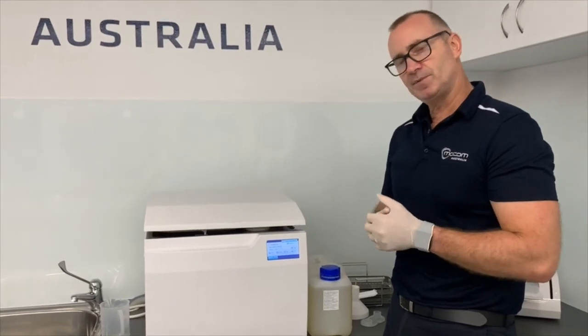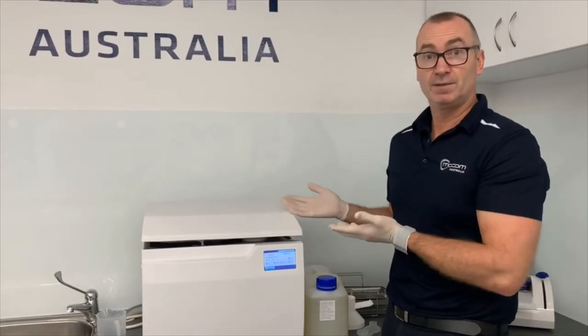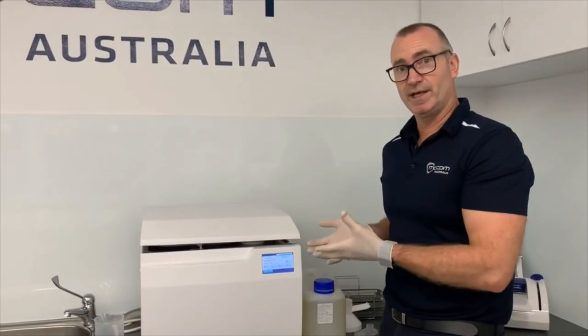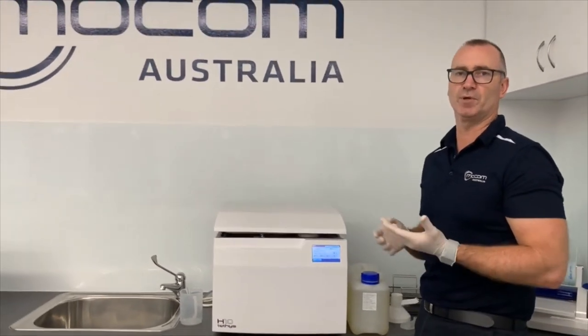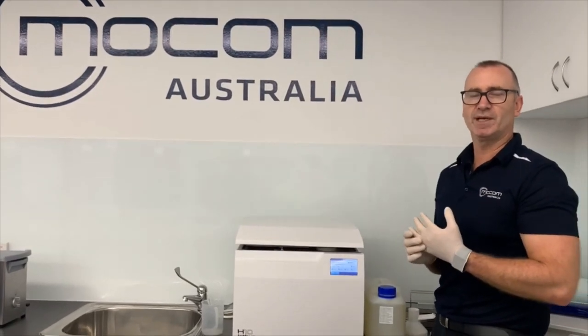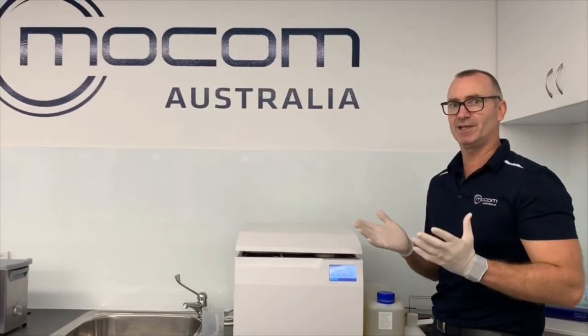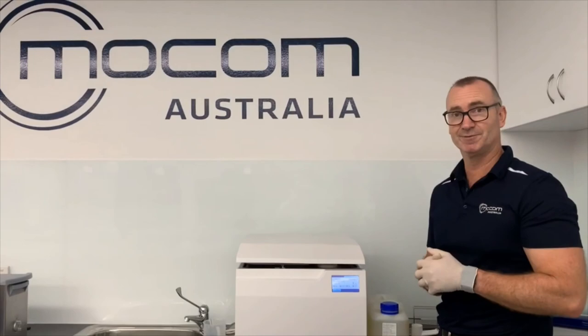They're really the key steps to maintaining and putting this unit, the H10 Tethys washer, into a state of care and maintenance or mothball, so that when you come to use the unit again, when your clinic's finally open, it's ready for action. Thanks guys.